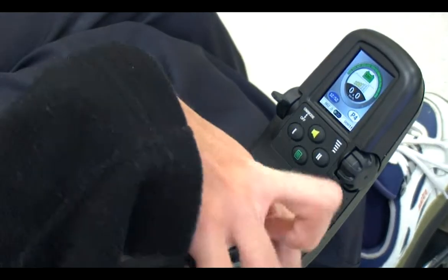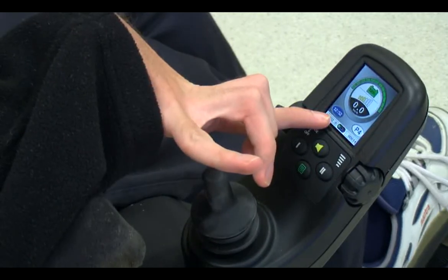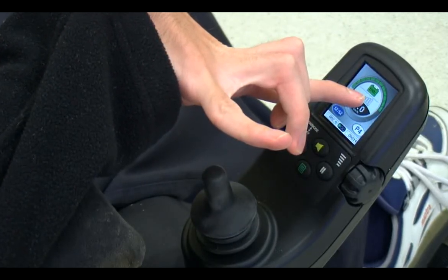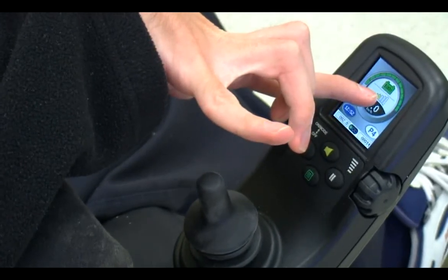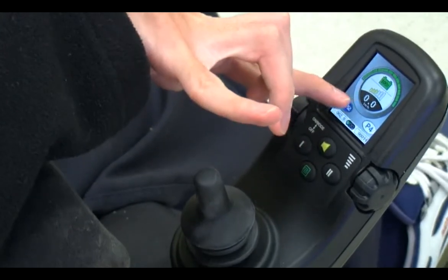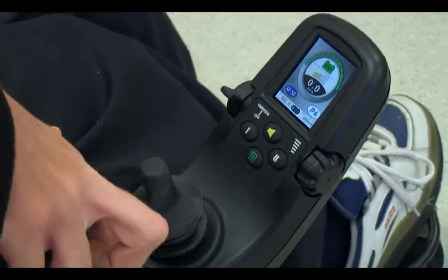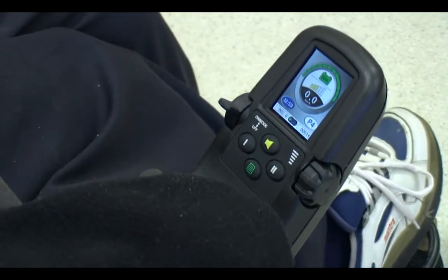It's got a built-in clock. It has pistons, and that way you've got a lift. And that's where you have to access the control settings.